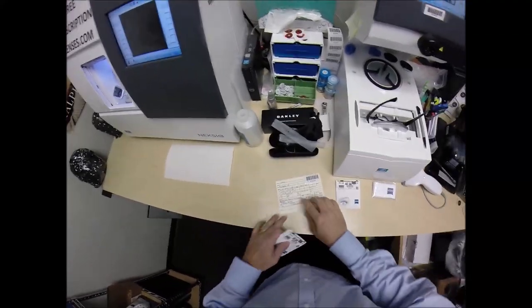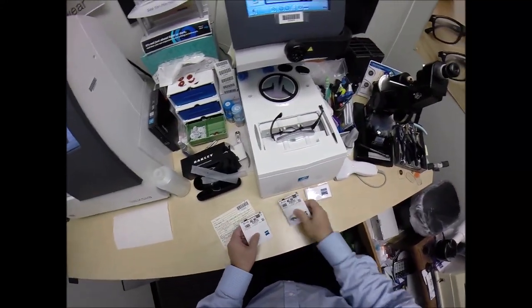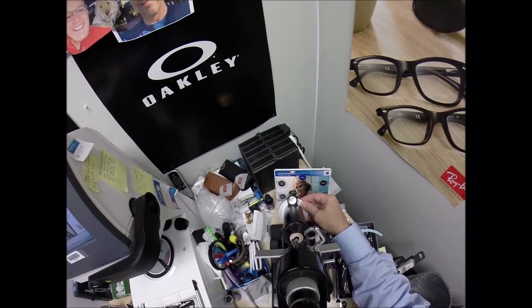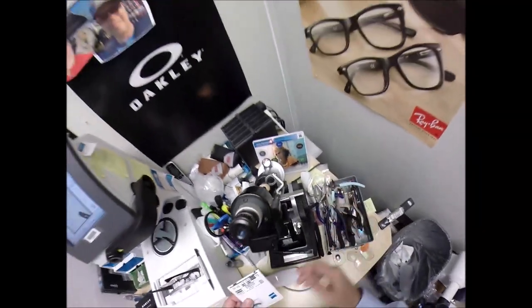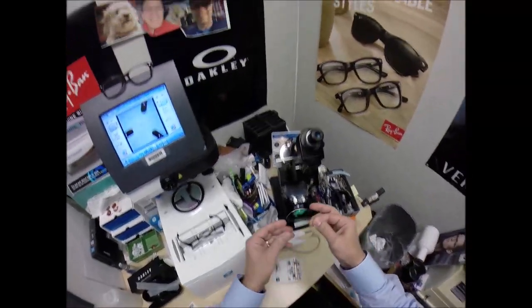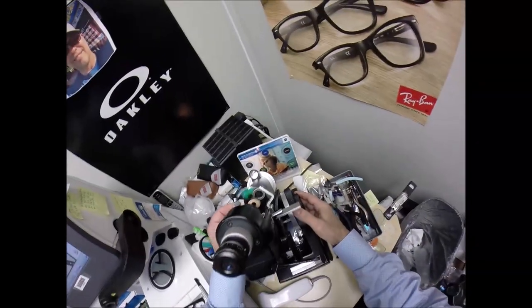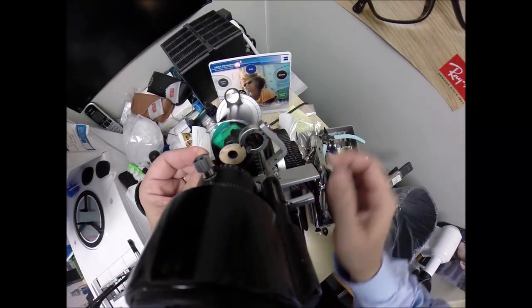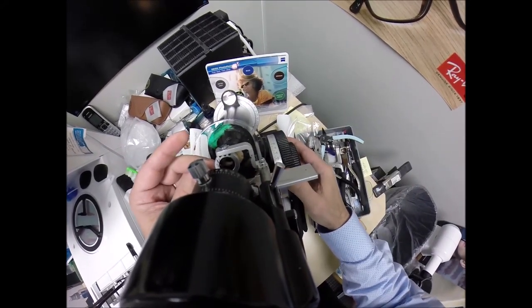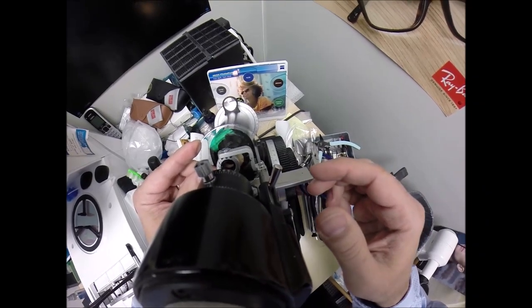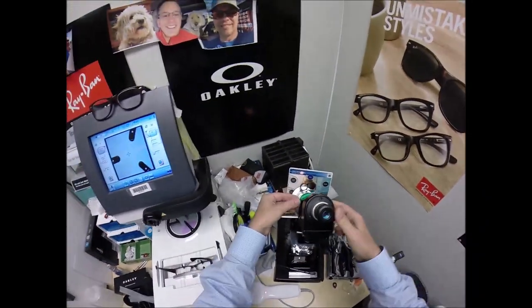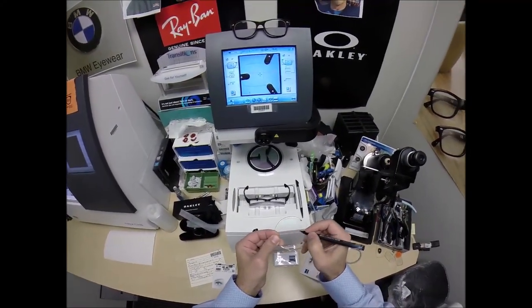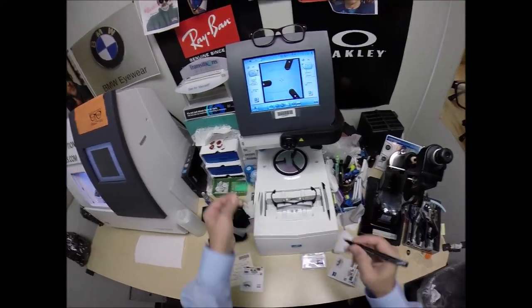Let's get your lenses prepped. Put your right eye as minus 1, minus 75 at 169. Minus 1, minus 75 at 169. We get everything done in there. Take the lens out of the protective packet. Place your lens into the sleeve. I've got to put it on minus 1 on the power drum. Rotate into the spherical component of your prescription, comes into view first. Check your astigmatism correction. I'll explain what all that means a little bit later. It means you need glasses. Put three dots on your lenses which are difficult for you to see, so I'm going to mark that. And this is the right lens, place it on the platform.